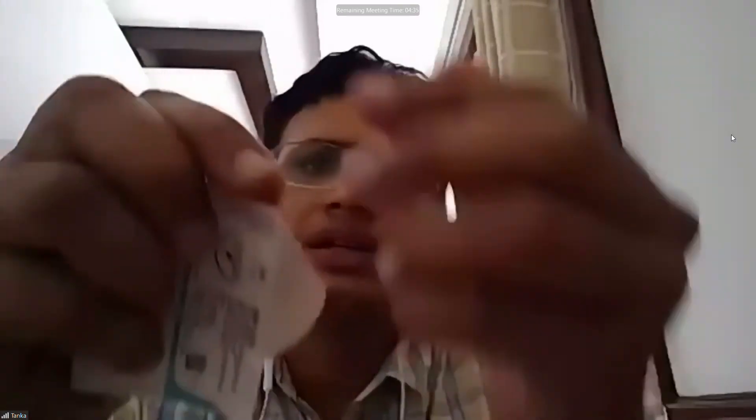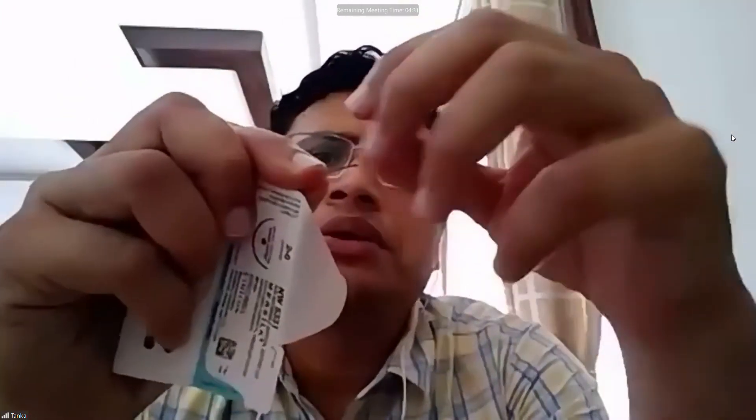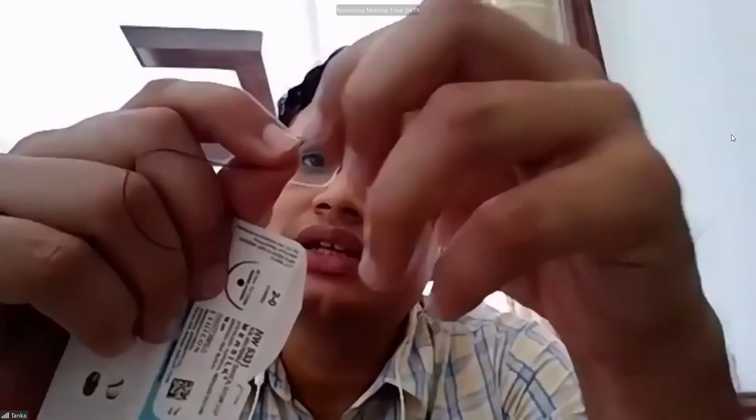The instructor opens up a silk suture packet to demonstrate. The silk suture is a multifilament suture. If you look carefully at the end, you can see there are multiple threads — these multiple small tiny threads are braided together to make a single suture. This is an example of multifilament. In a monofilament suture, it will be made up of a single thread with no tiny threads like these.